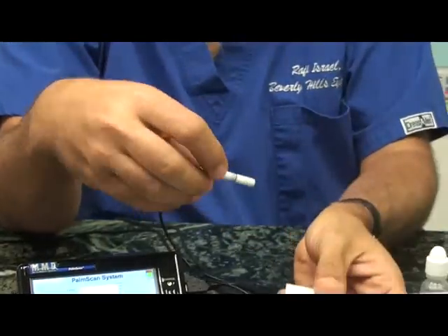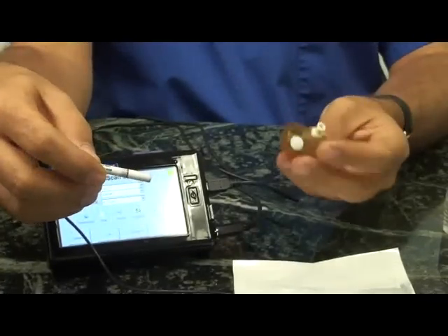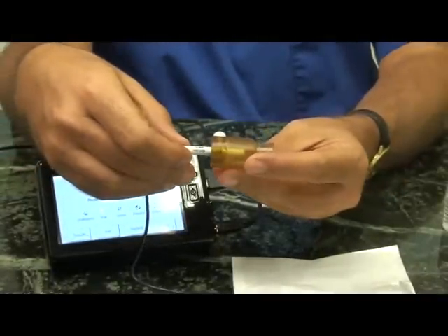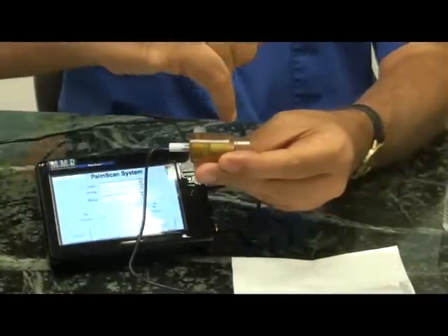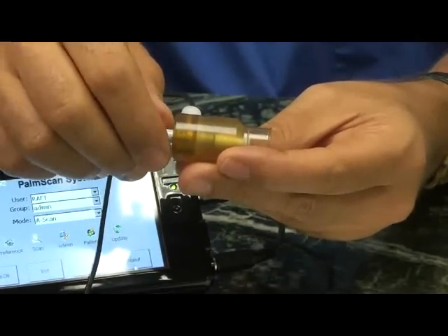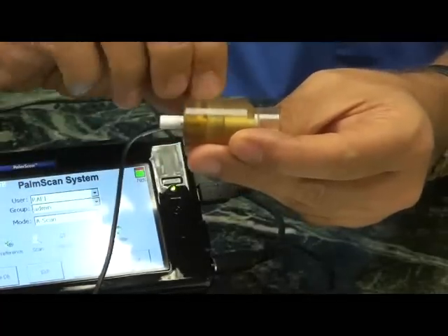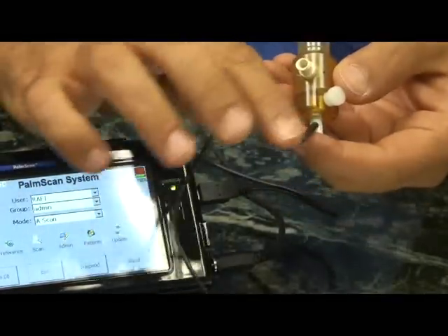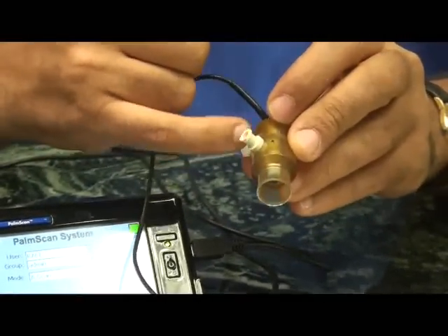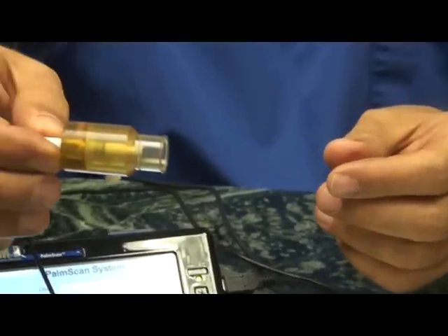It uses the same A-Scan transducer that can be used for the Prager shell. If you're using the Prager shell, we recommend that you place the transducer and align it with the line on the Prager shell. I usually align it so the wire is coming out on the same location as the tubing intake — the lower intake — and then fasten the screw, which prevents the transducer from moving.